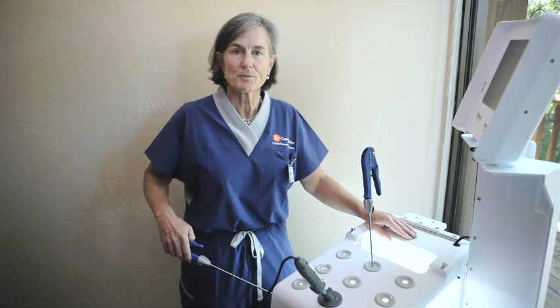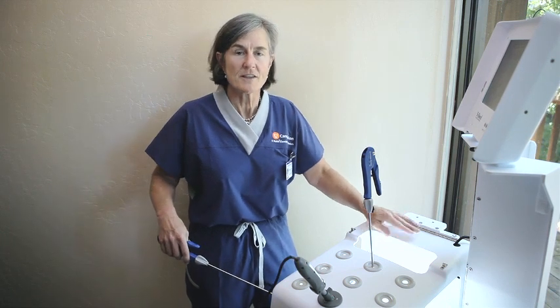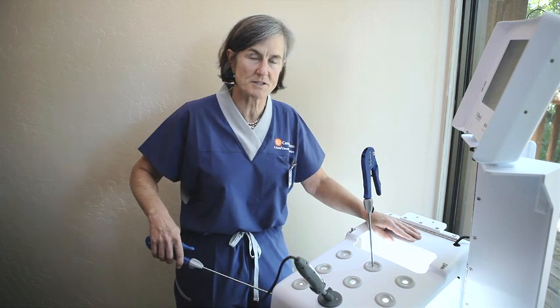I'm standing now at a 3DMed pelvic trainer. This is the kind of pelvic trainer that I use to build my laparoscopic skills.